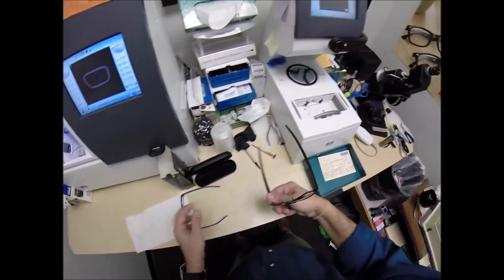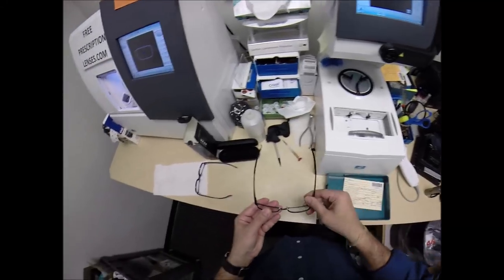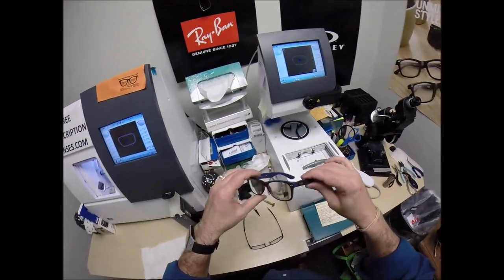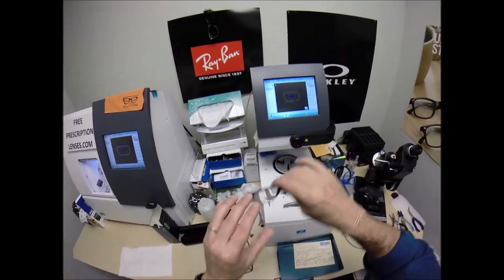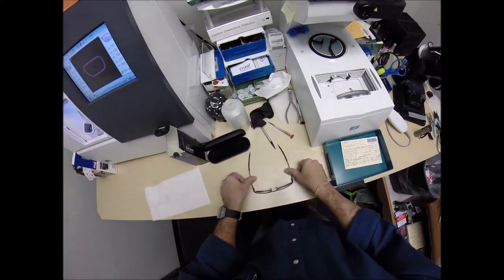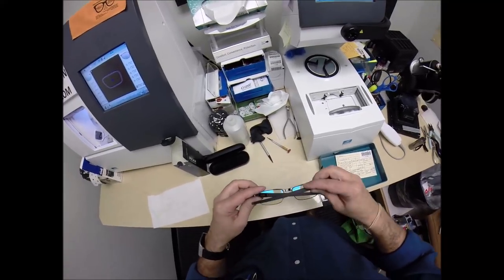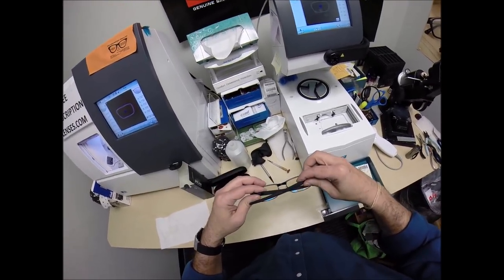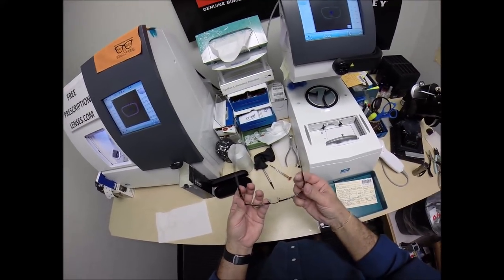But if I'm trying to tighten to check and see if a black screw is stripped in a black frame, these are my surgery glasses. I can't see farther than the screen right here. I have my computer distance in the top and super strong at the bottom. That's why I keep those there for inspections. But I flip that over, press down. There is no wobble. Close each temple to make sure they overlap perfectly. Neither temple is off skew. Check the tension on each spring hinge. That's the same.